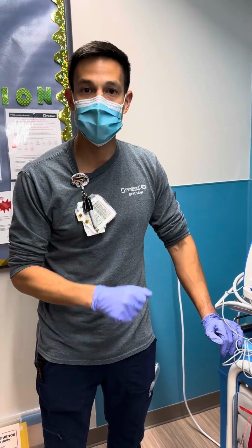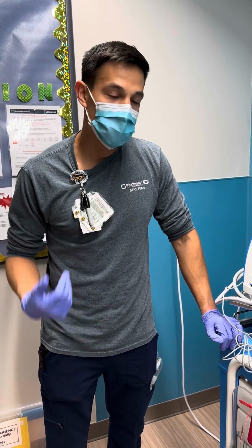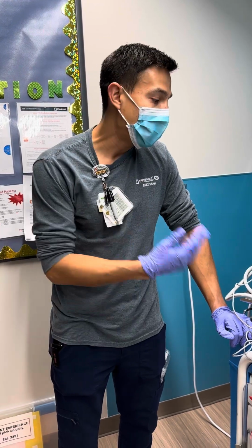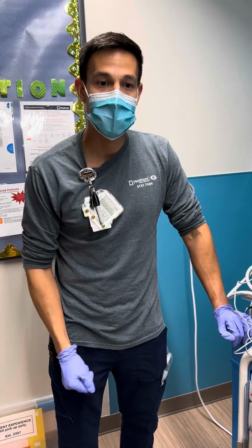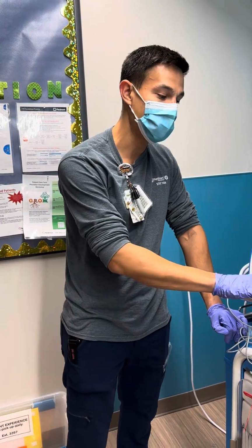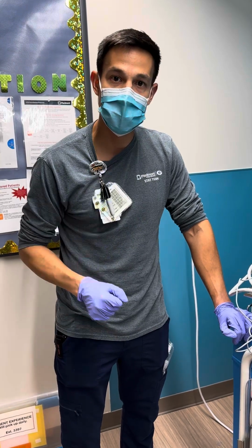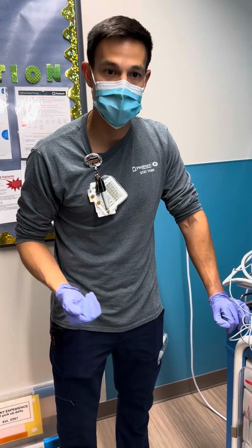Let's say we've done a great job, we've achieved ROSC, and we have a pulse now with our patient. We've just done a code here on the ortho floor and we need to get that patient to the ICU. Traditionally, we'll hold the Doppler in place to make sure we still have a pulse. End-tidal will give us that information without the annoying Doppler sound. We can simply leave that end-tidal in place as the patient's being ventilated. If we start to see that ETCO2 decrease, we know we may be getting ready to code that patient again.